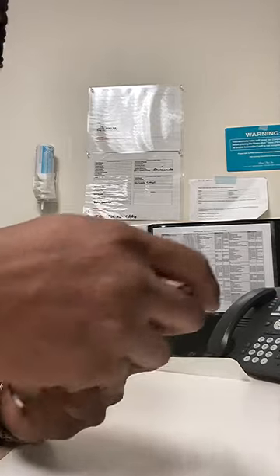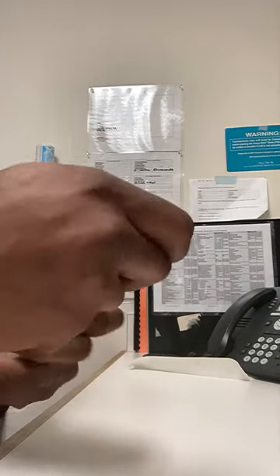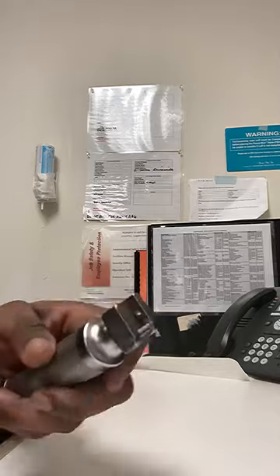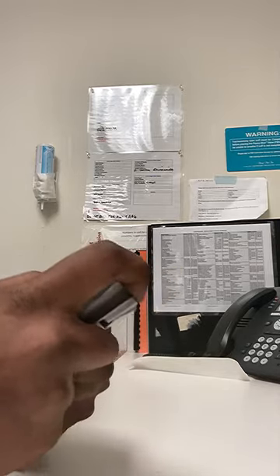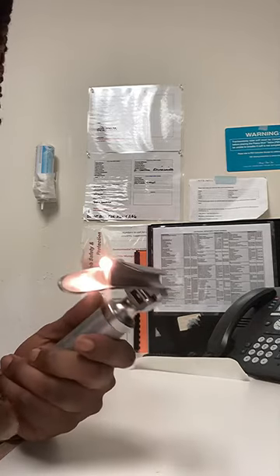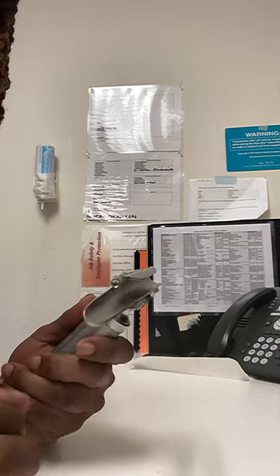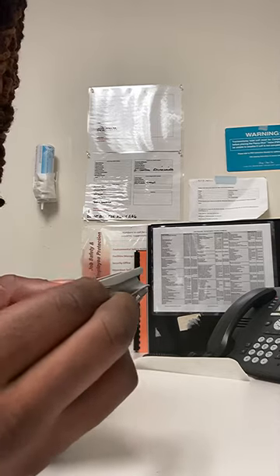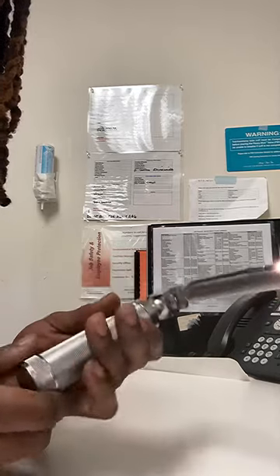The Mac blade is attached — front side, attached like that, snap it into place. The light should come on. Sometimes the light can be loose, so if the light doesn't come on, try to screw the light in place first, or try the batteries.